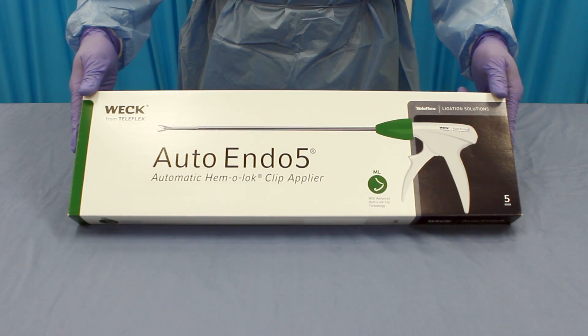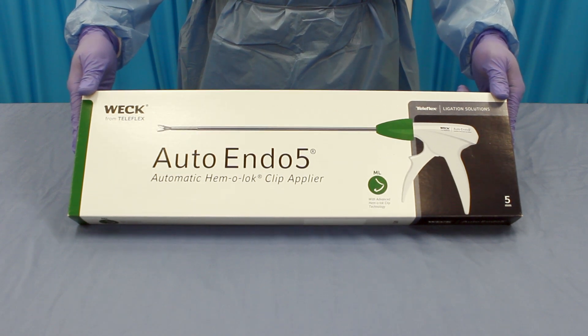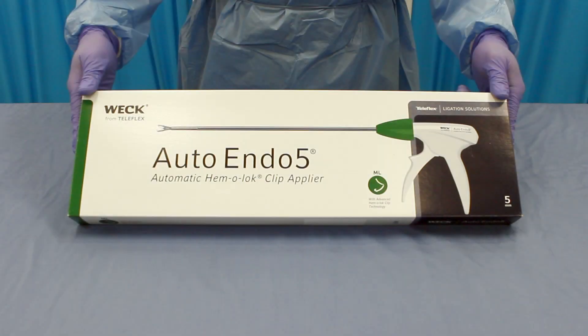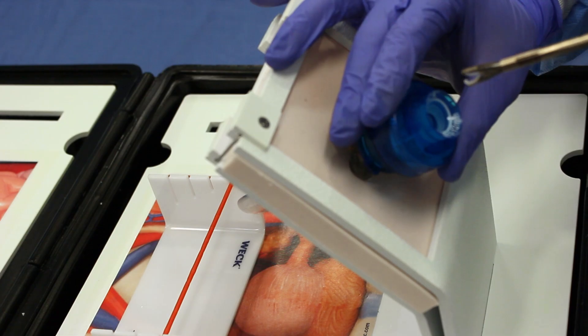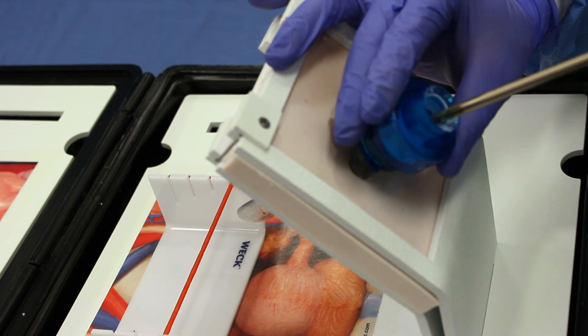Weck Auto Endo 5 Hemolock Medium-Large Automatic Endoscopic Ligating Clip Appliers are indicated for use as delivery devices for Hemolock Medium-Large Non-Absorbable Polymer Ligating Clips.